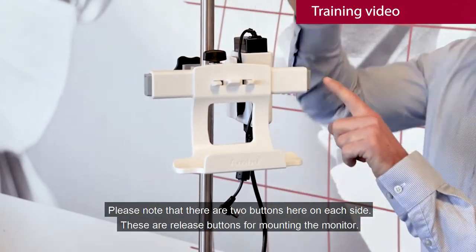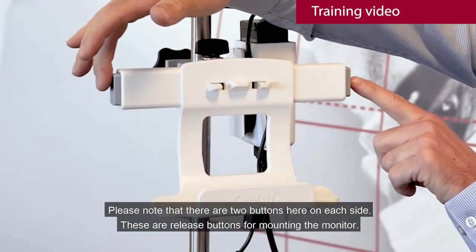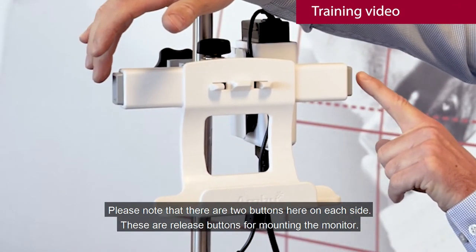Please note that there are two buttons here on each side. These are release buttons for mounting the monitor.